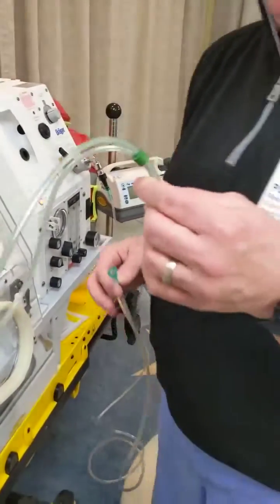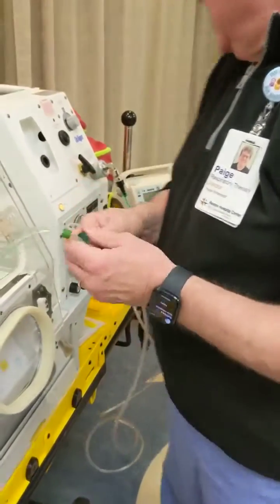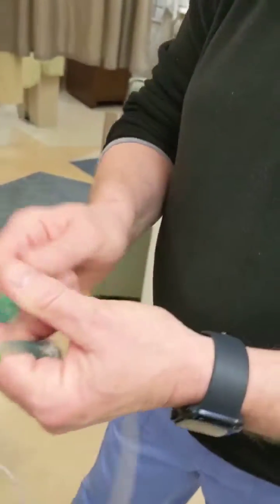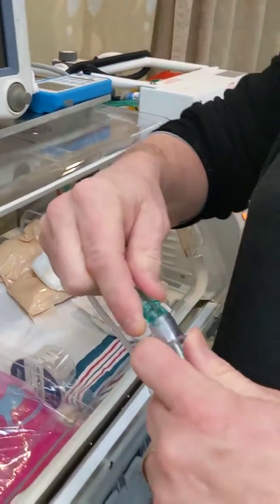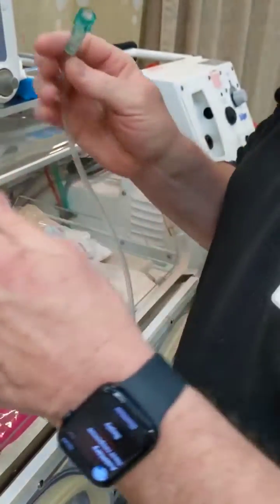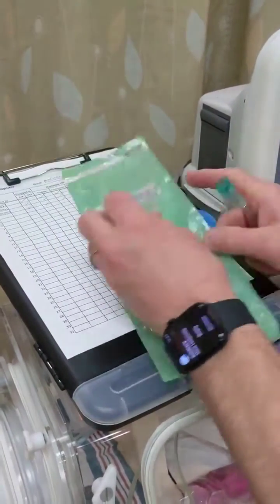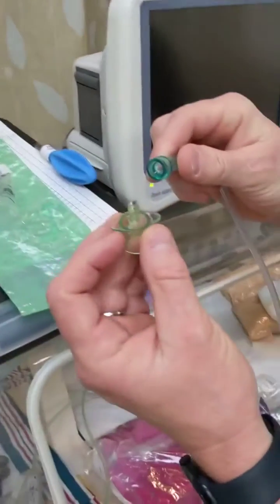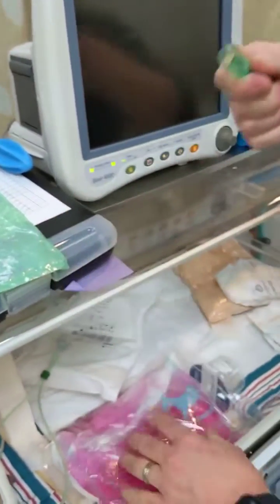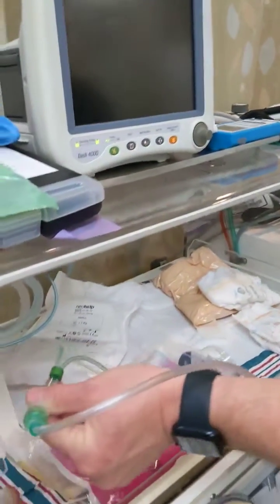So we're going to use that same RAM cannula to deliver high flow or nasal cannula to your baby. I have my oxygen line coming out of here, but the oxygen line, you'll notice, does not connect to the RAM cannula. I could cram it in there, but that would be ugly and awkward and it would fall apart. In the RAM cannula package is an extra piece. It's right here. When I open that extra piece, which I did earlier, it has a piece that connects to the oxygen line and a piece that connects to the RAM cannula. Now I can set my flow back here with this dial.